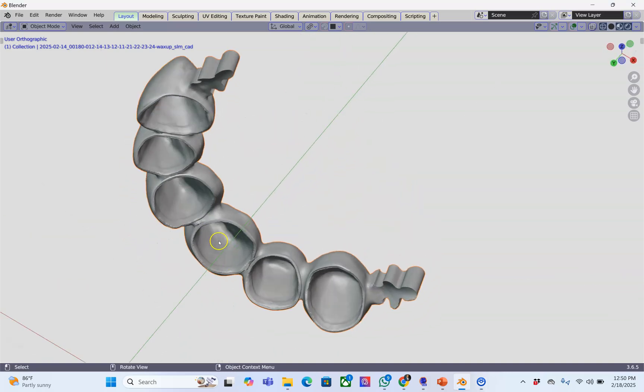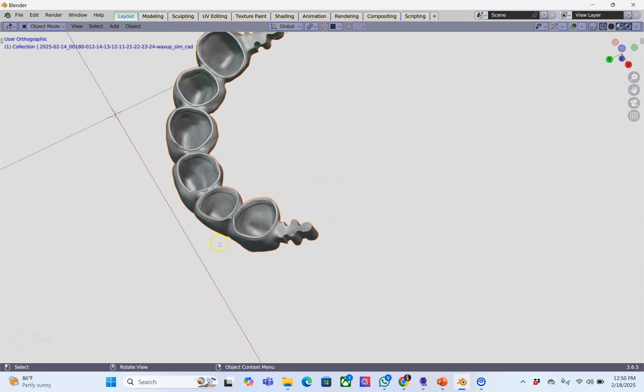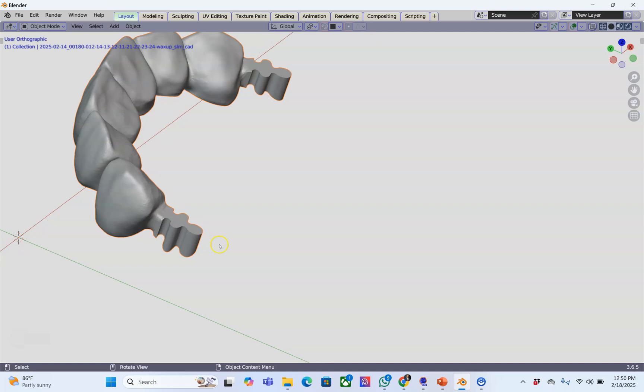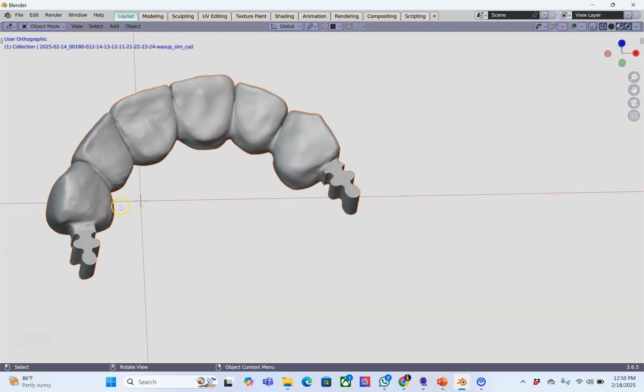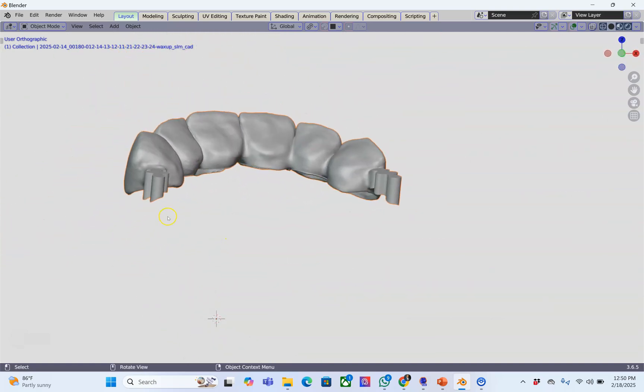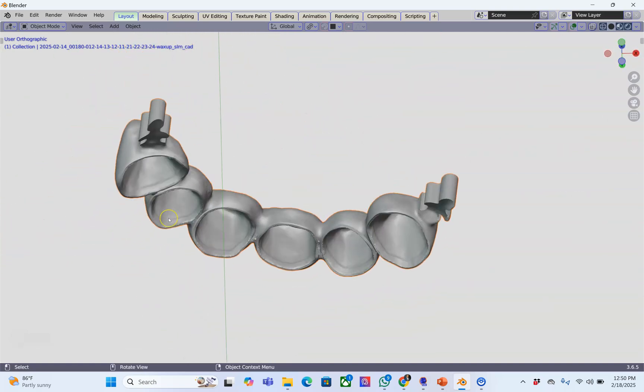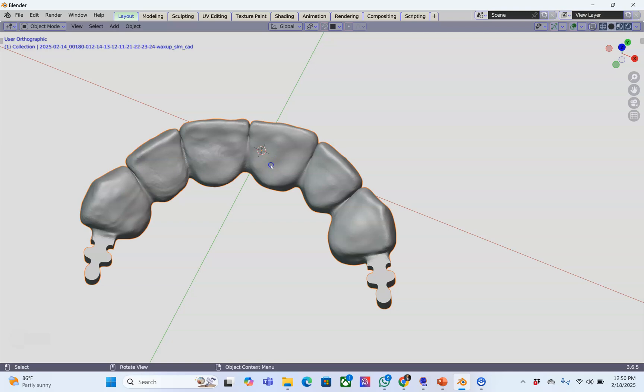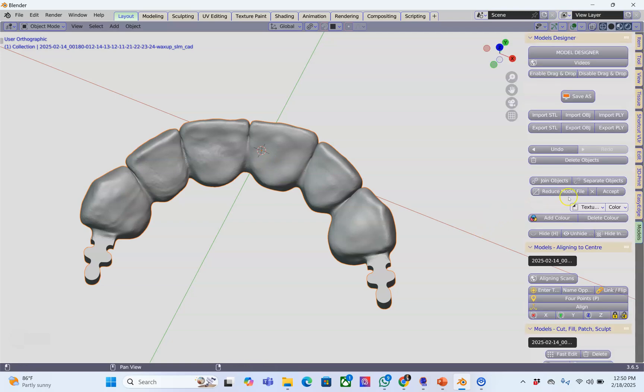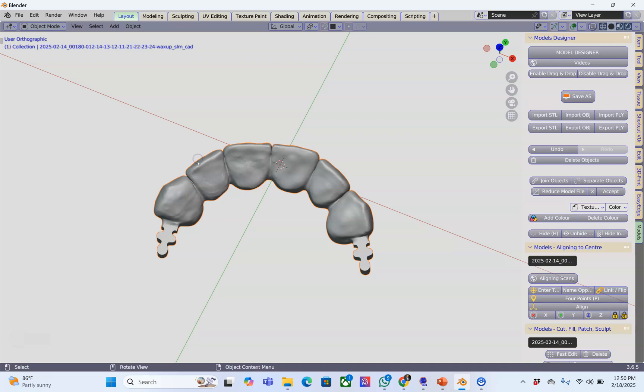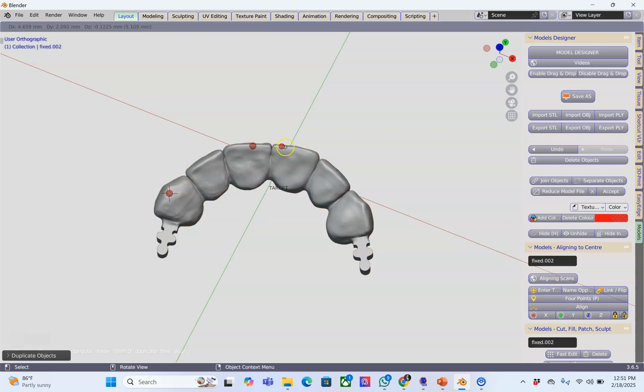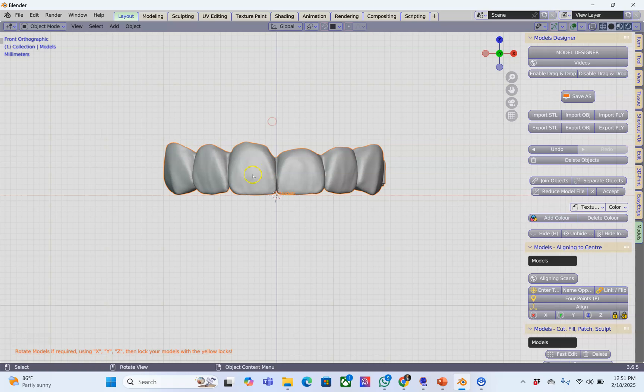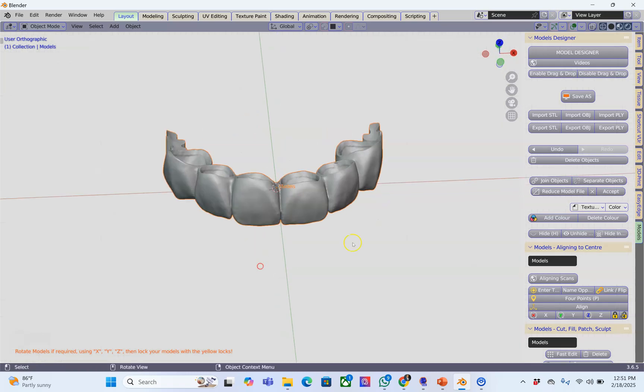In this video I'm going to be using the Easy Edge module to split this bridge. This is actually relatively easy. First I'm going to align the bridge to the center of Blender. Here we go, it's facing down which is okay.